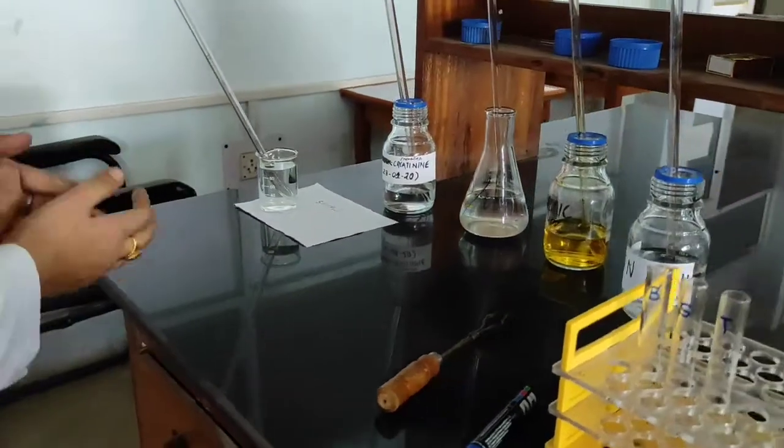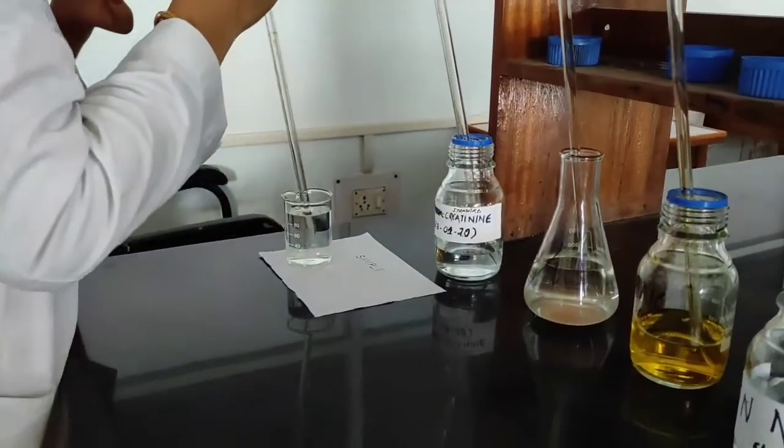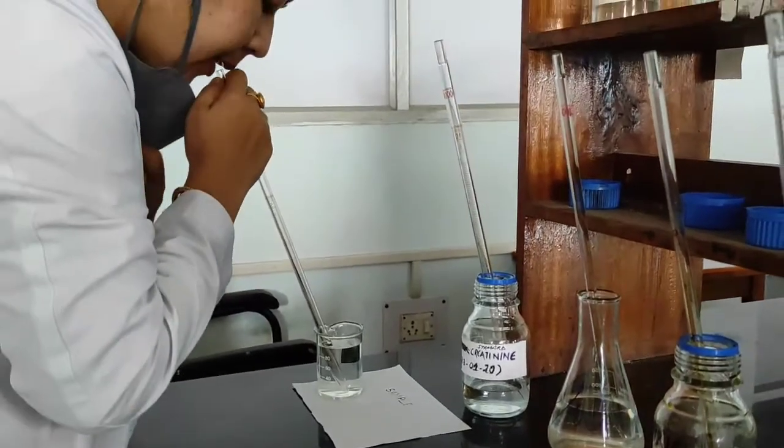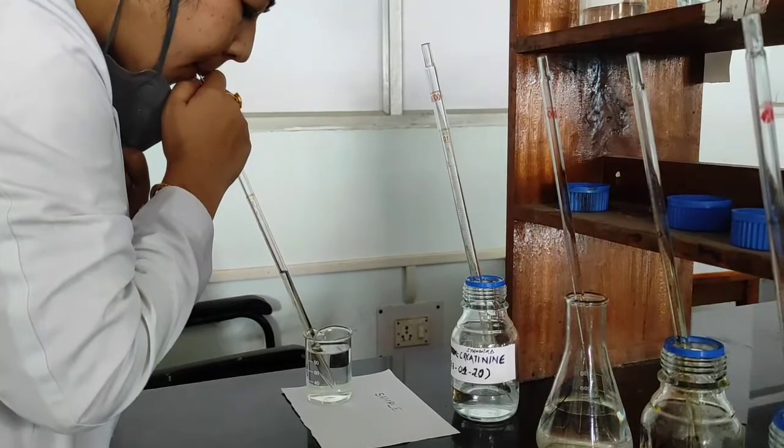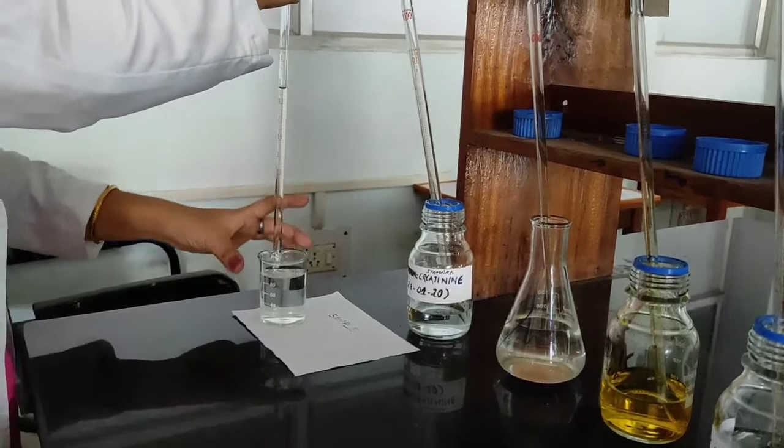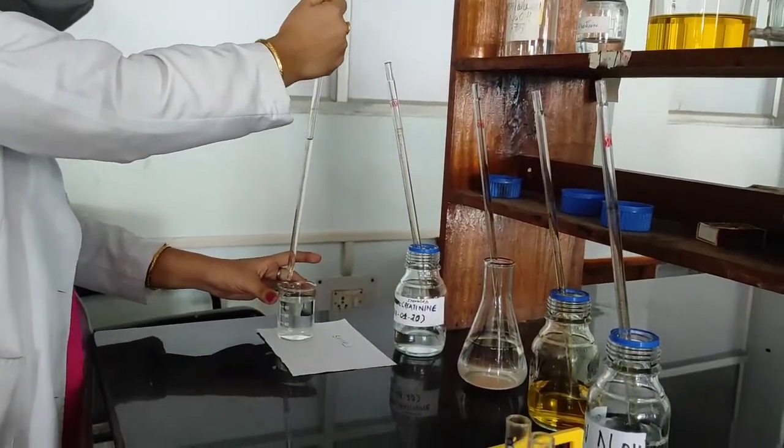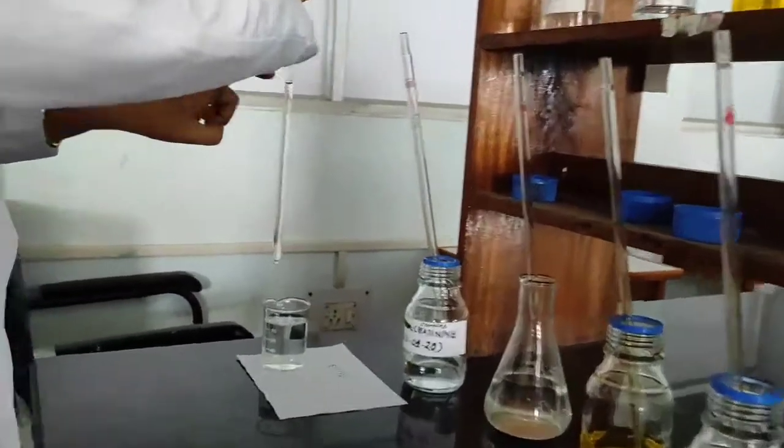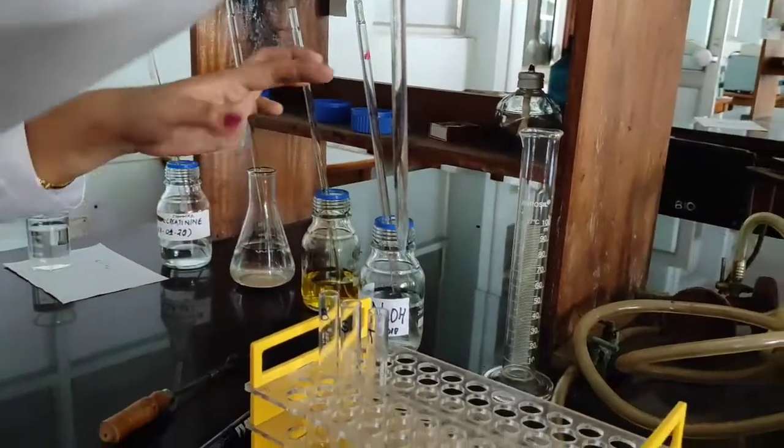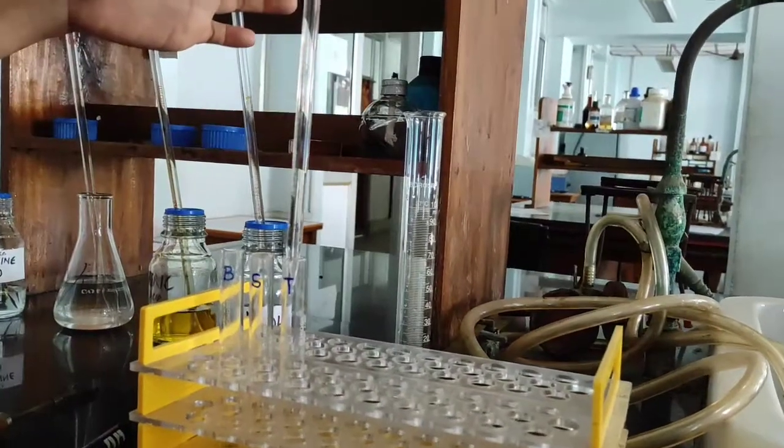So first, I have to take three ml of the sample. While taking the reading, we have to read at the lower meniscus. So, this sample, I have taken in the test tube labeled as T.